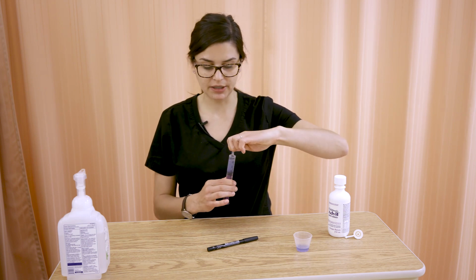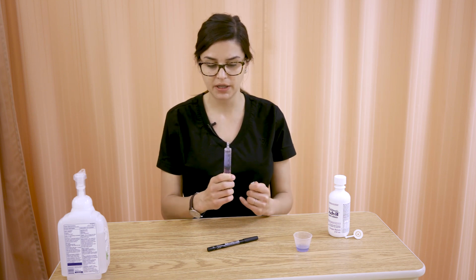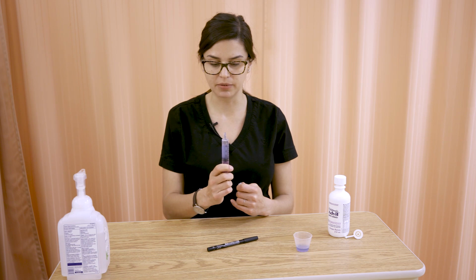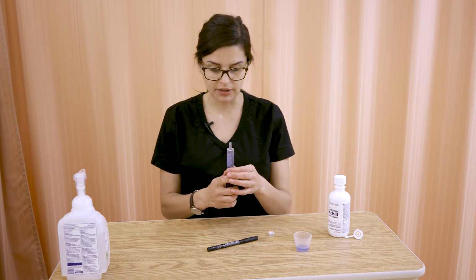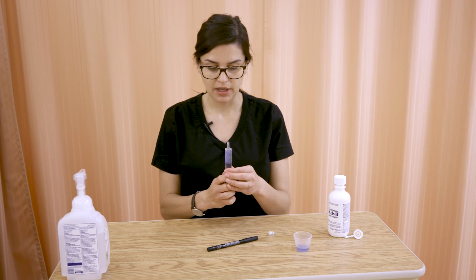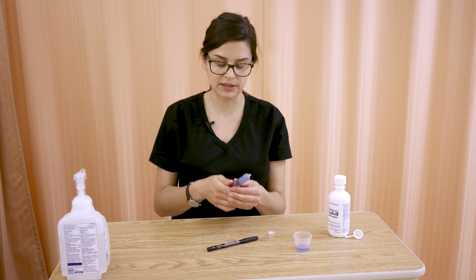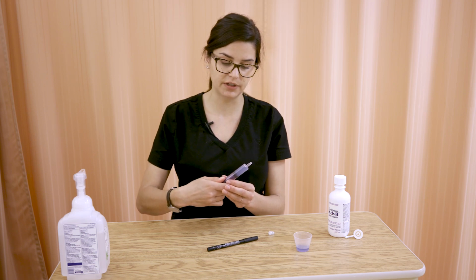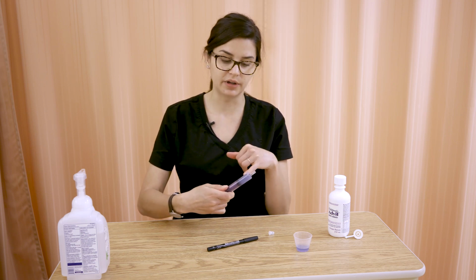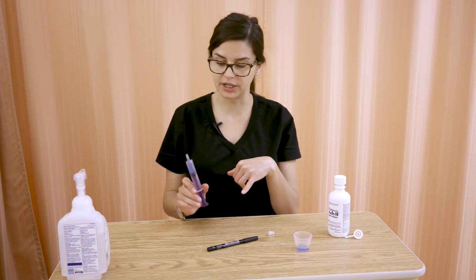So now we're going to take our cap off. Sometimes you see a little bit of medication collect there in the tip. Before you push up, I would actually say pull back on the plunger just to get everything back in the barrel. Now you're going to push up, and I'm holding the syringe at 90 degrees, not only so you can see it in the video, but that's an important thing to note: when you're standing at the med station, don't hold it on any sort of an angle, because when you go to refill it, if you're holding it on an angle, it will not fill evenly. You'll get bubbles around those top corners or edges there.